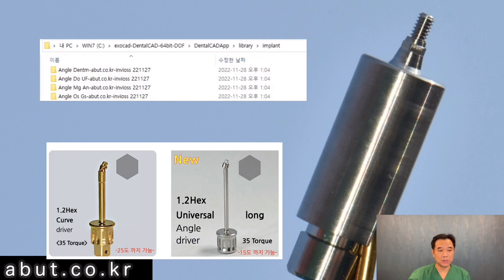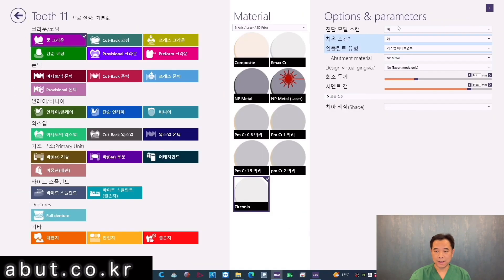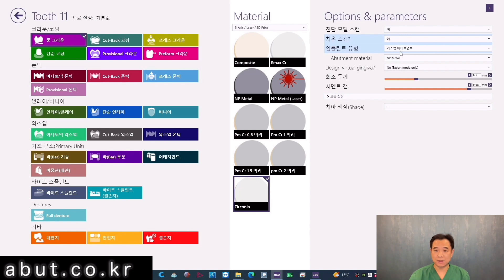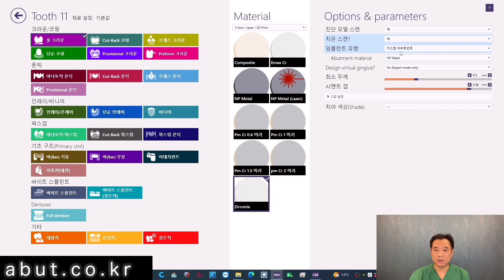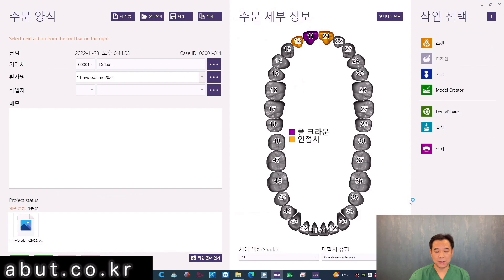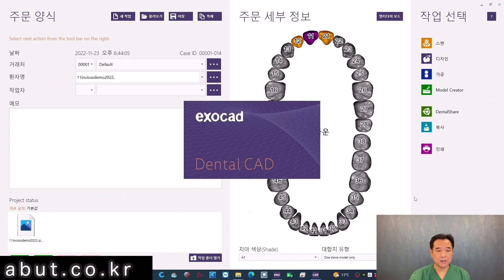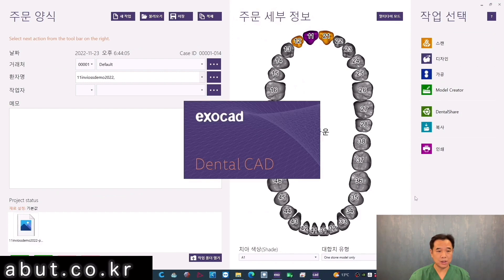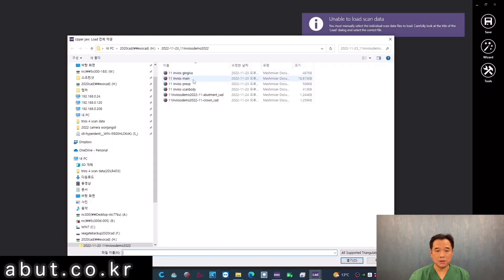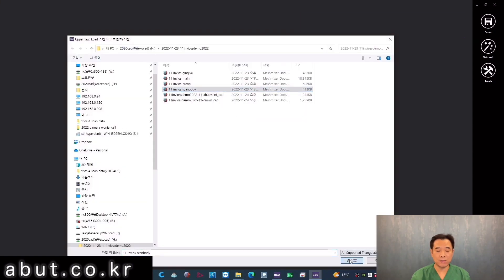When you load the library in Exocad, select Custom Abutments. After executing the order, the next step is scanning. Usually there's a hole on the side of the scan body. When putting the scan body onto the implants of the main model, this indentation on the scan body should be facing the lingual side to make things easier.